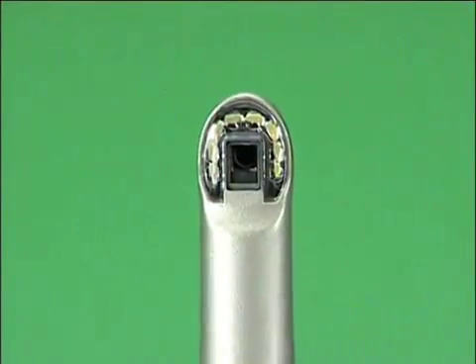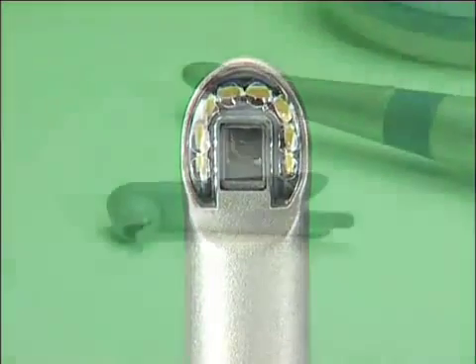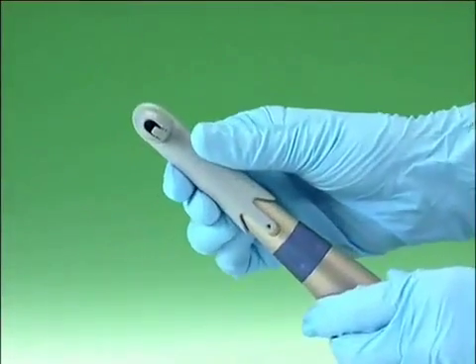The Sopro Shade function. The Sopro shade concept of the intraoral Sopro 717 camera is a help to the visual shade selection. The light provided by the 8 LED located on the camera head allows it to be totally independent from the ambient light. The Sopro tip that is clipped on the camera head will isolate the tooth from the environment, and the shade selection will no longer be sensitive to interfering colors.